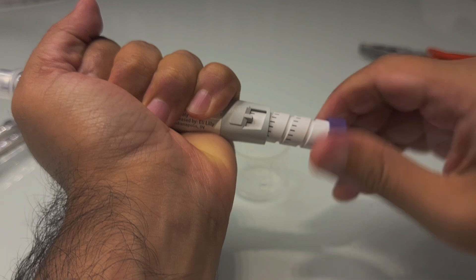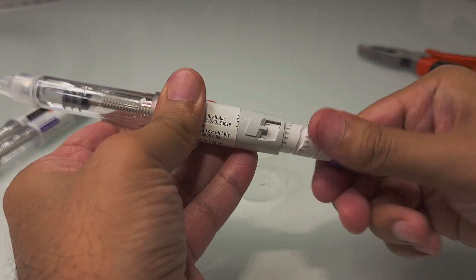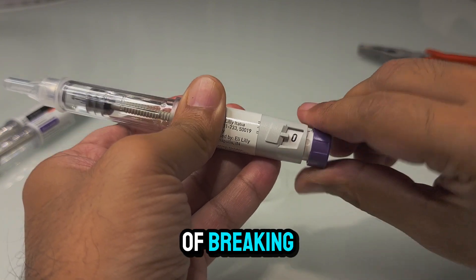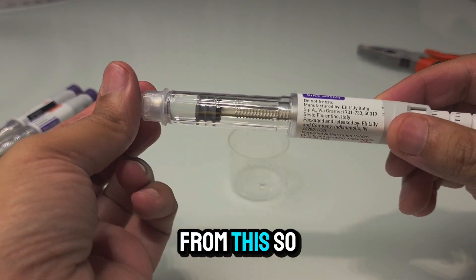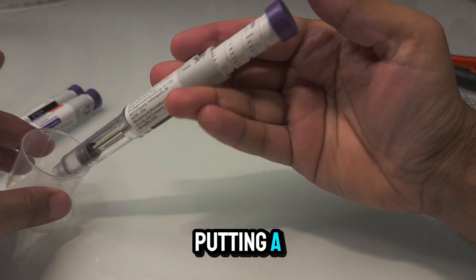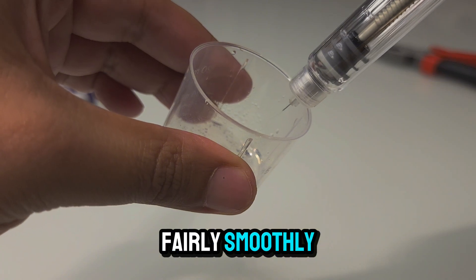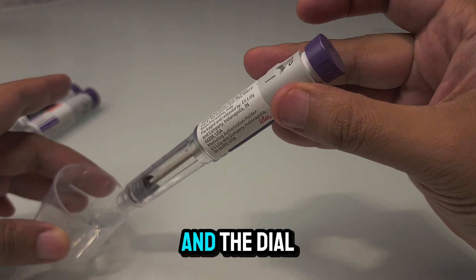With some extra force I managed to move the dial. I'm checking whether it goes smoothly — it's a bit smoother but still not a normal feel. There's no sound of breaking plastic; I can hear normal clicks but they get a bit blunted. I remove the cap and apply very gentle pressure at the back — and the fluid is coming out fairly smoothly till the last drop. The dial is now back to zero.